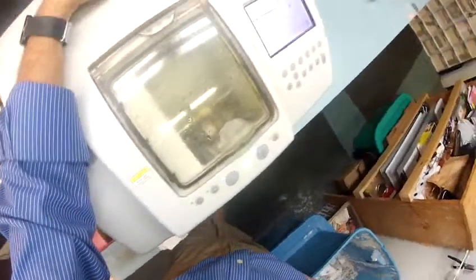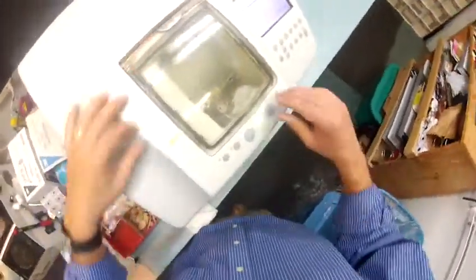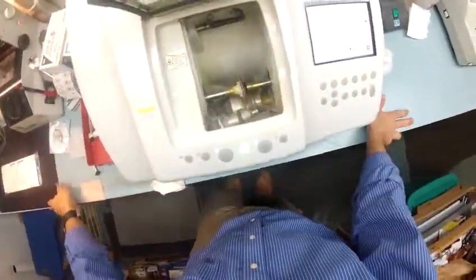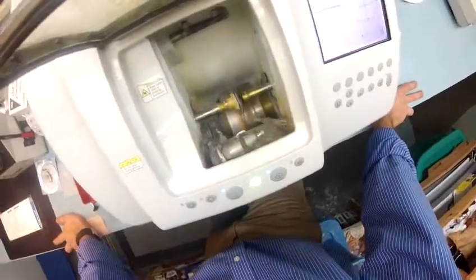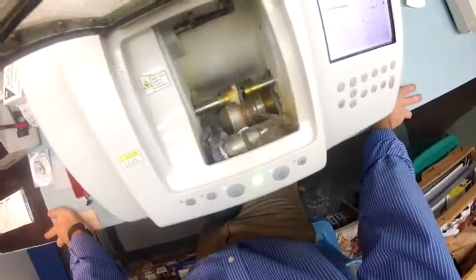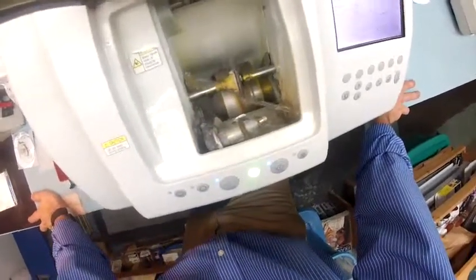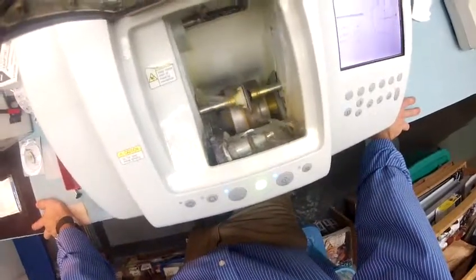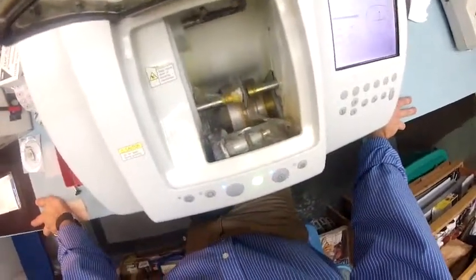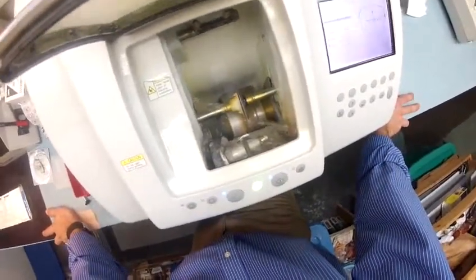Now you see me at my day job. Tonight I'll be emailing you this video once it's finished and uploaded to YouTube, so you can see everything being made. Now, this water cycle — I should have pointed out before — polycarbonate cuts dry. This is the only time during the cutting cycle that the water kicks in. It's just washing away any optical debris — optical sawdust, if you will — and it keeps the dust down.